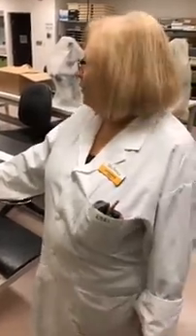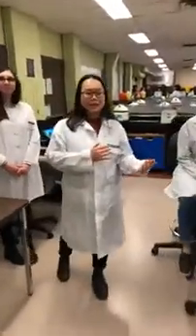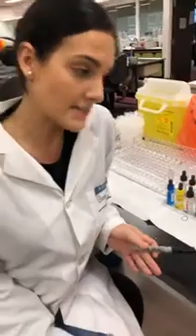So this is transfusion. Would you like to tell the Facebook Live community what you do in transfusion? Transfusion sciences is the study of blood products and exchange, and any complications that may happen during that transfusion exchange. We have demonstrations here — one of the more popular examples would be a patient that comes in after an accident and we need to give them a type and screen to see what blood product we can transfuse them with.